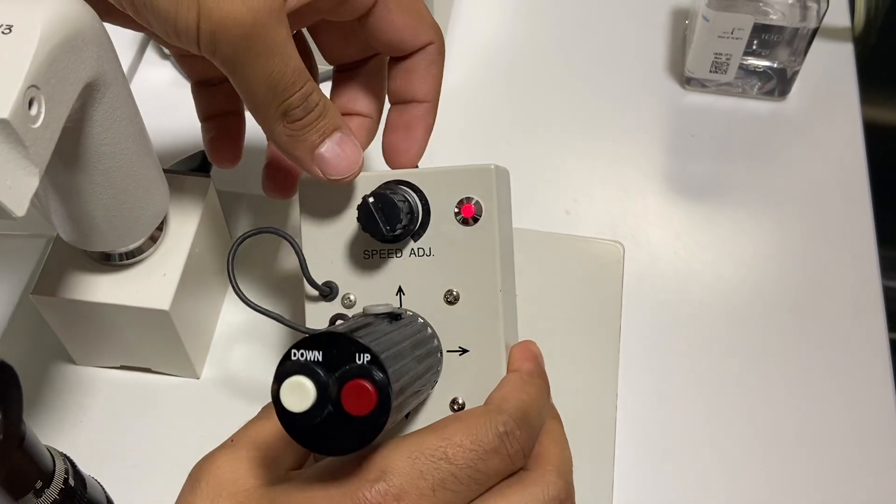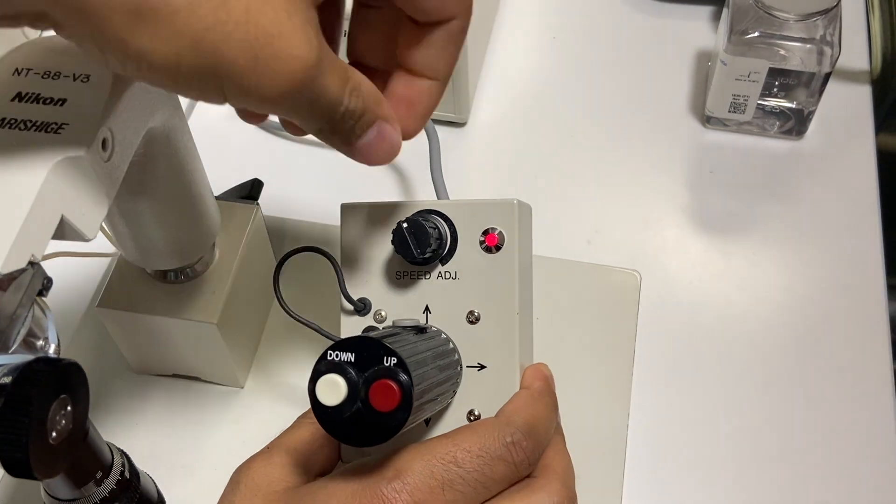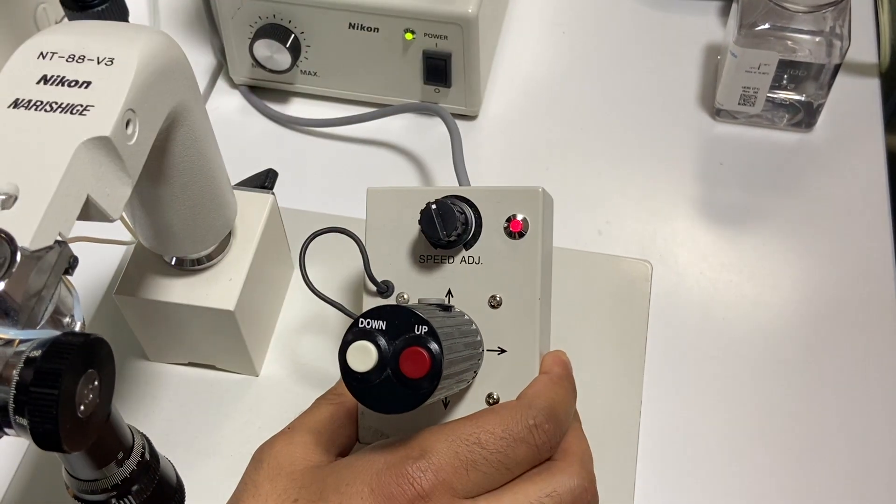And also there is one more button which is for the speed adjustment. We have kept it almost in the neutral, like it is not too high and it is also not too low.